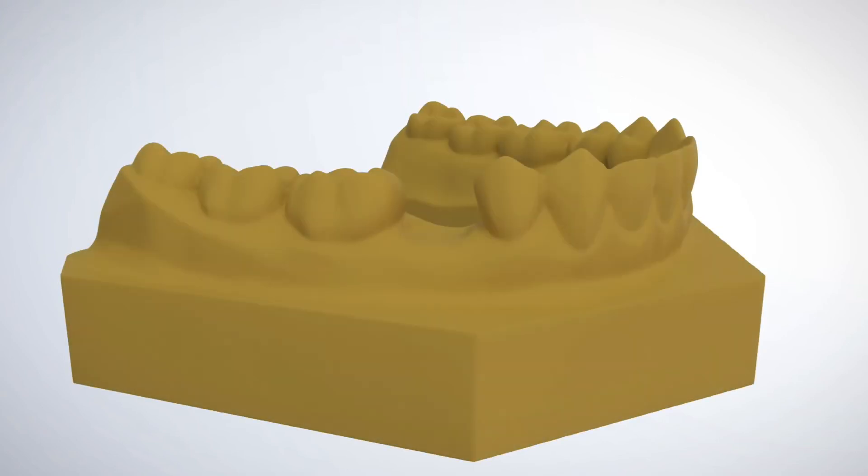Creating a GRS surgical guide from a stone model is virtually the same without the need for 3D implant planning software. A 2.3 millimeter drill is used to create a hole in the stone model representing the location and orientation of the implant.